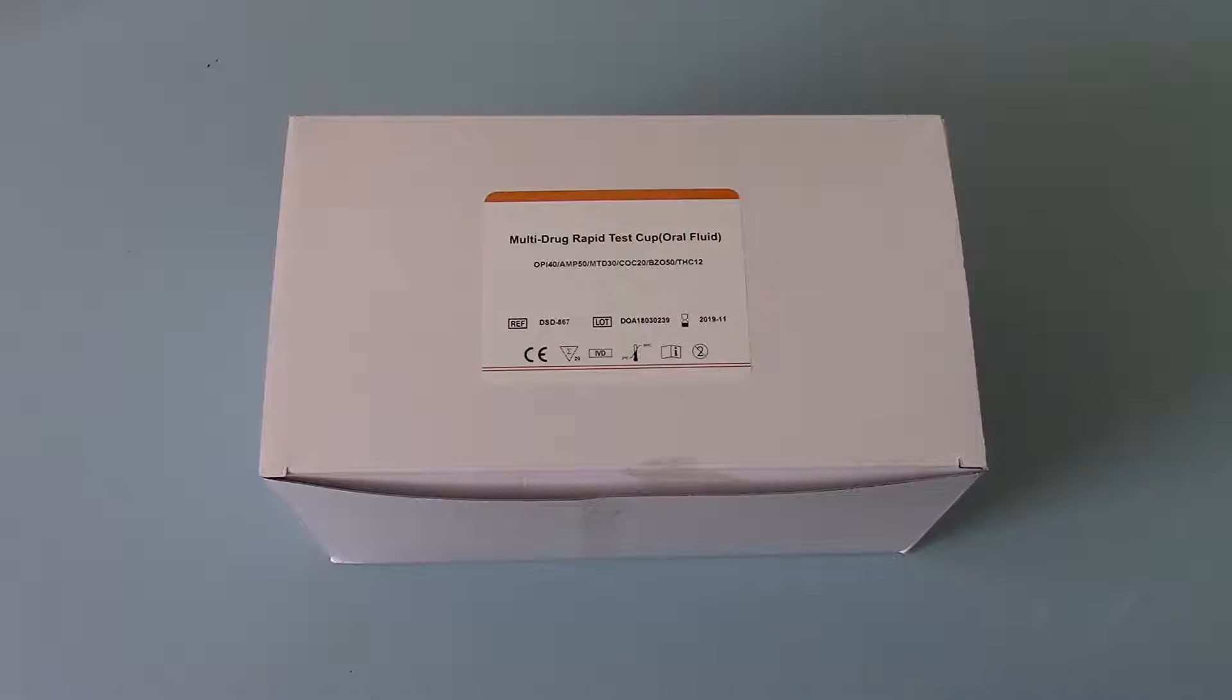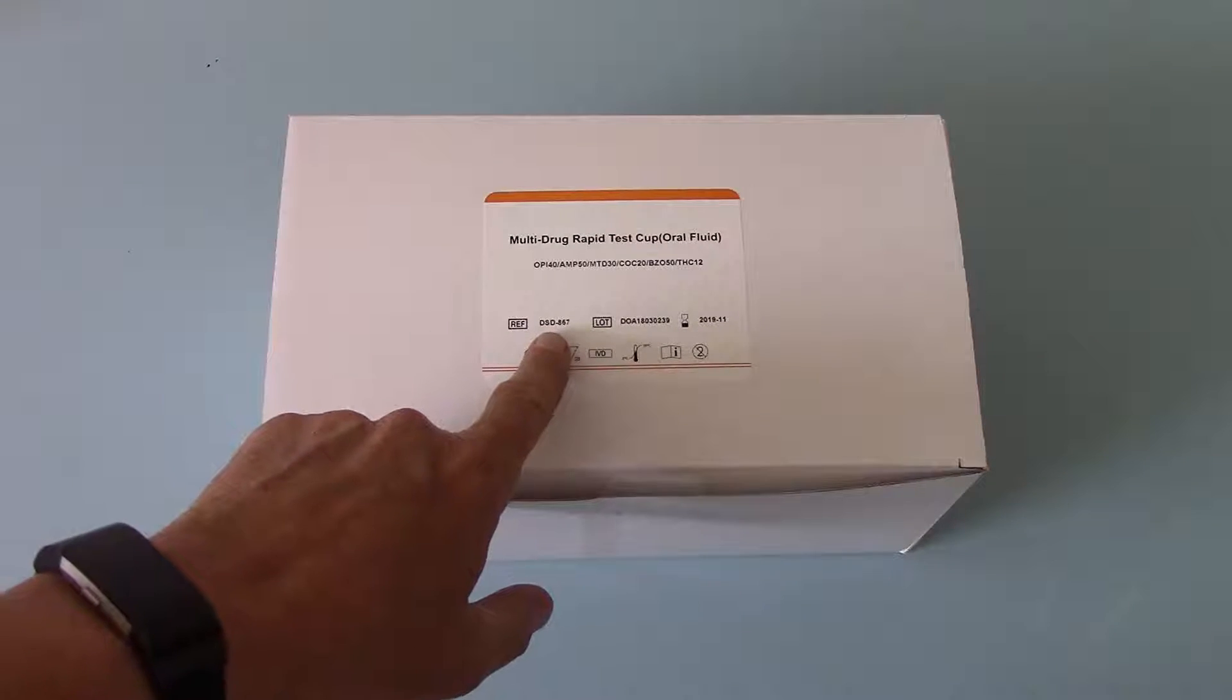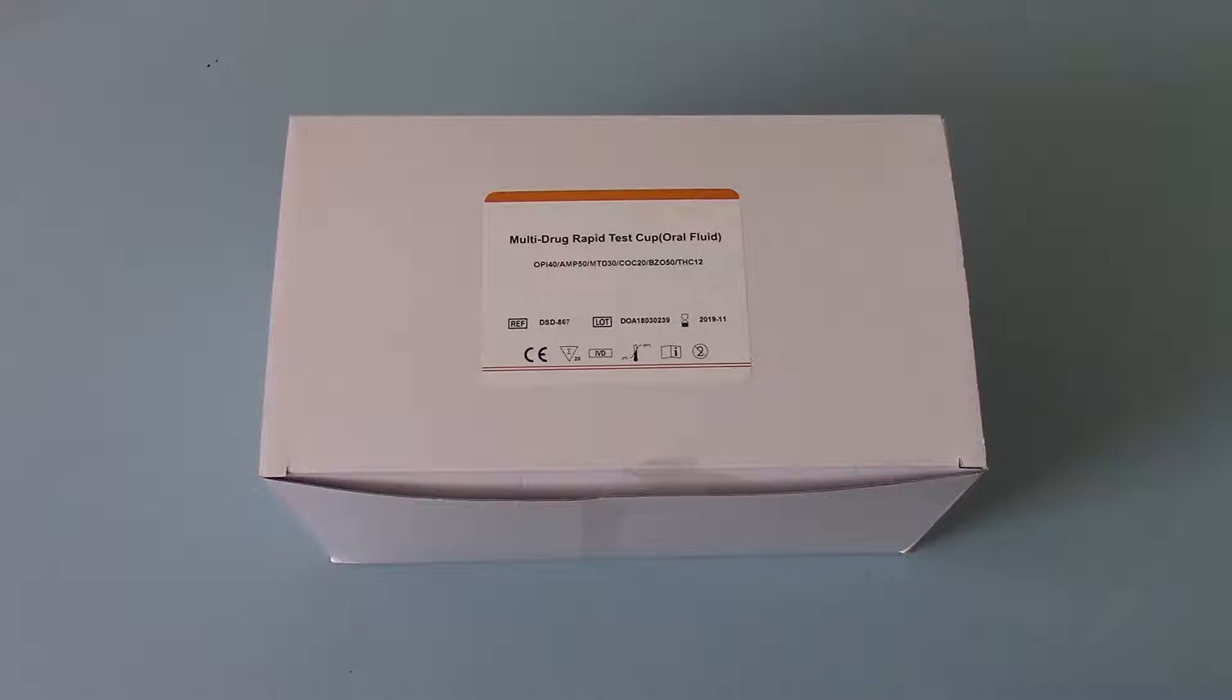Just to make you aware, we do sell them in a variety of different six drug combinations, these tests, all under the same catalog number DSD867. So it is important to look at the combination coding that is applied on the website to these.